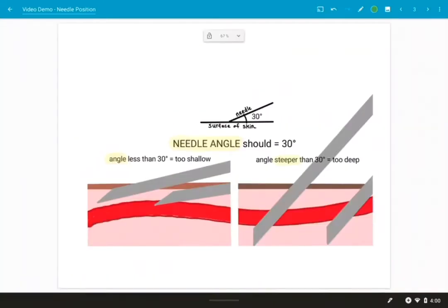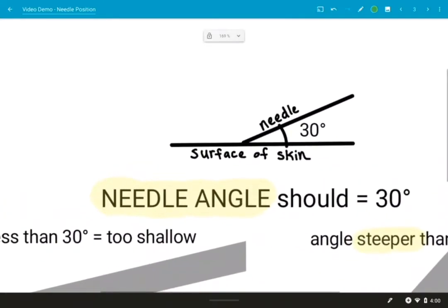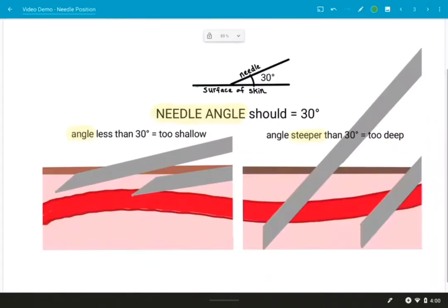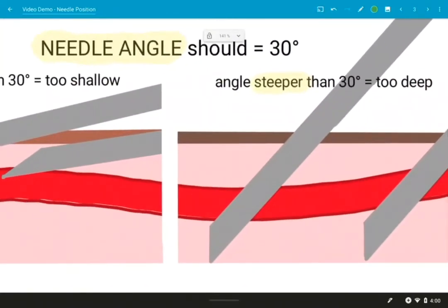And if you insert the needle too deeply, so we look at our little chart here, if the needle is instead more like this, maybe like a 45 degree angle or a 50 degree angle, chances are you're probably going to miss the vein because it's really hard to get into it at that angle. So you'll totally miss it. Sometimes you'll manage to get a little bit of your bevel in and that will cause a hematoma.